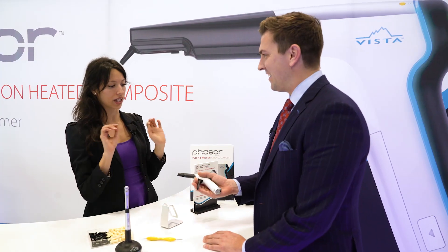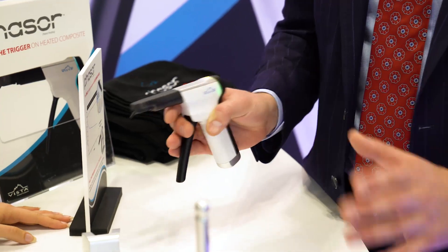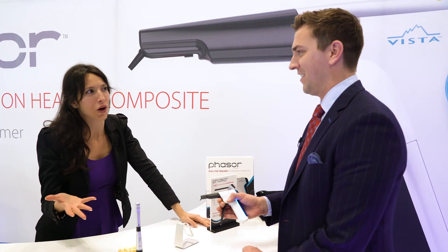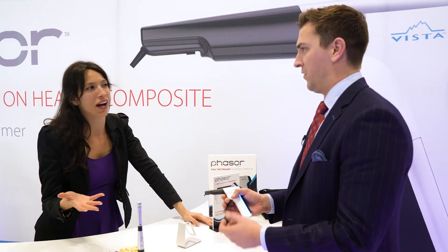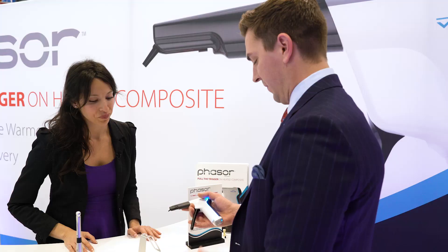So when it's solid blue, we're gonna get going. There are multiple flow settings, so depending how flowable you want it, you've got options. You want it flowable — you don't want any voids in the tooth. You want it to self-level onto itself.